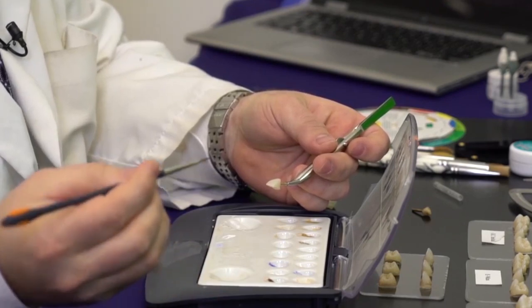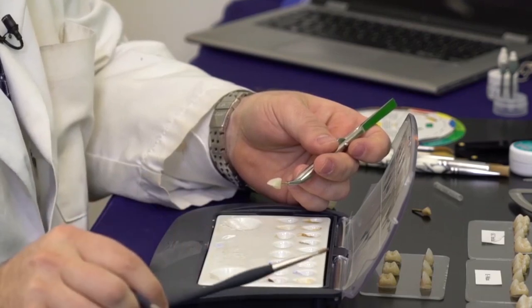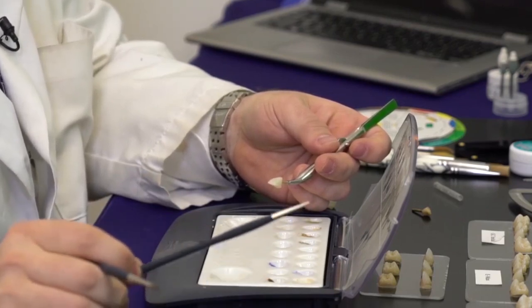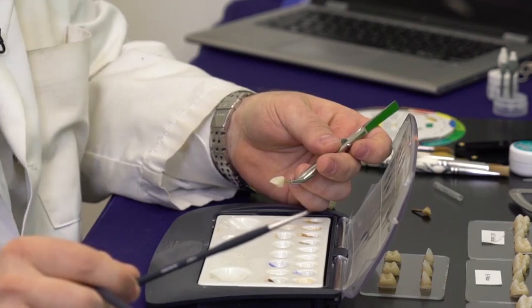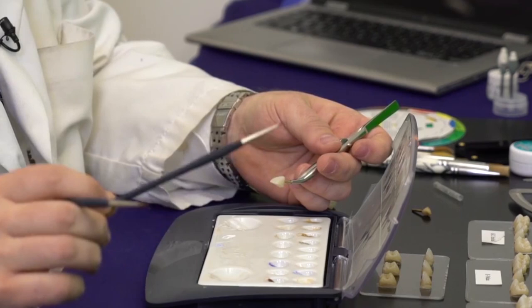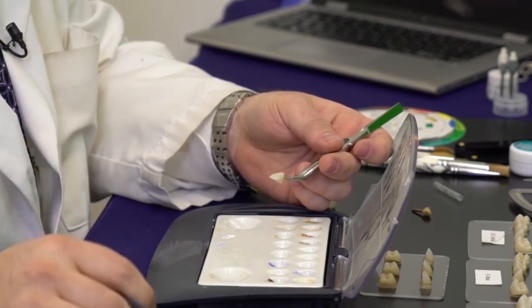I take a slightly thicker brush — as I said, the set comes in three brushes: the first is a glaze brush, then a stain brush, and finally the smaller color brush, which allows me, especially in the occlusion, to get into the finer fossae and grooves and really make it look as natural as possible.